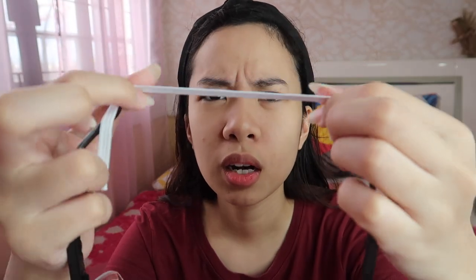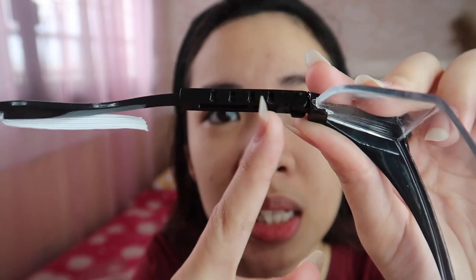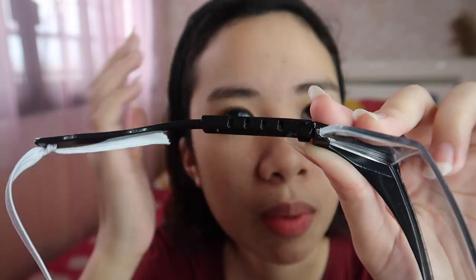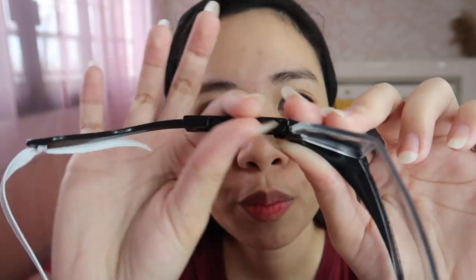We also placed a garter at the back because it was falling off my small head and wouldn't fit properly. What I like about this is that the plastic is very thick — as in, very baga. It's not the kind that can easily fold; it's not flimsy at all. It's really nice quality. I also like that the side arms are adjustable — there are 4 slots on each side. I actually locked it on the very last slot because of my small face. Both sides can be adjusted. There's also a hole where you can place a garter for extra security so it really won't fall off.